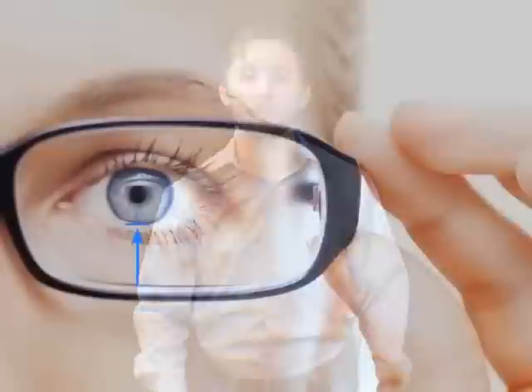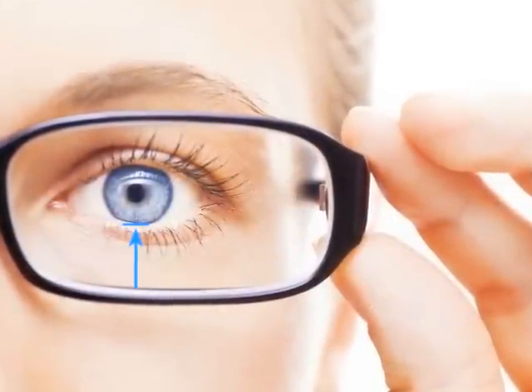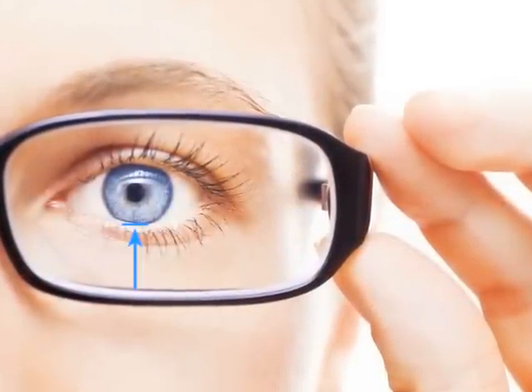To measure segment height for a lined flat-top bifocal, you'll want to measure from the bottom of the lens to the top of your bottom eyelid in millimeters. You can also measure a specific point on the lens different from the top of your bottom eyelid if you'd like it to be in a different spot.